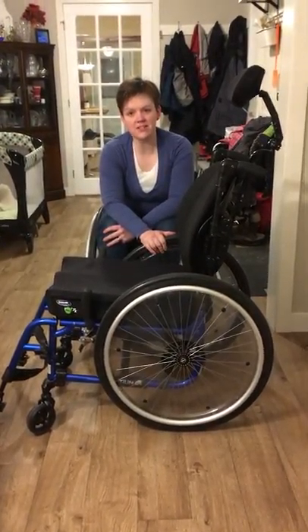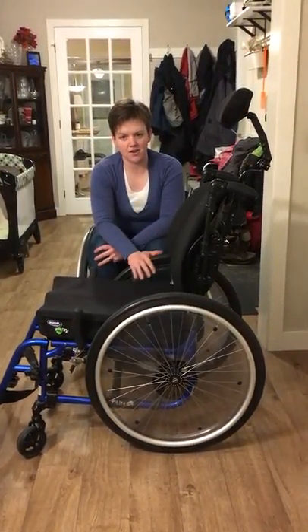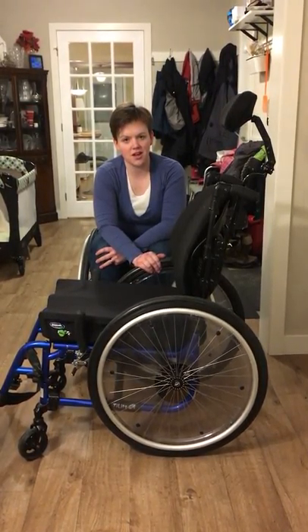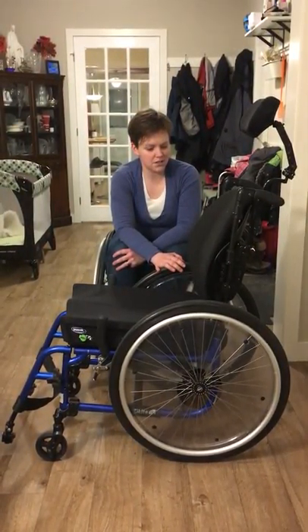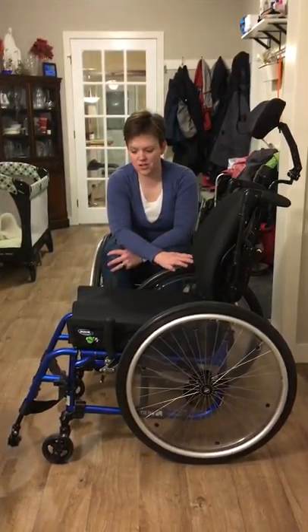Hello, my name is Marie Francis. This is my first wheelchair information video. I use a chair myself part-time for ankylosing spondylitis, which is a disorder of the spinal column, not the spinal cord. So this is just a basic review of how to set up and use a generic wheelchair.